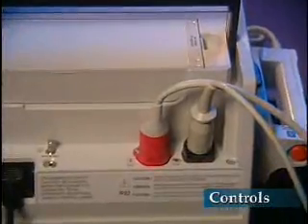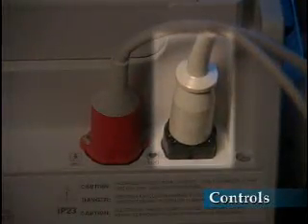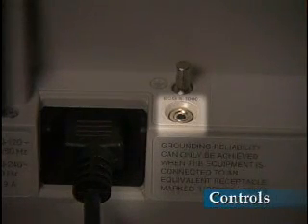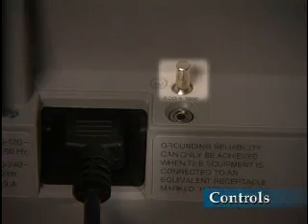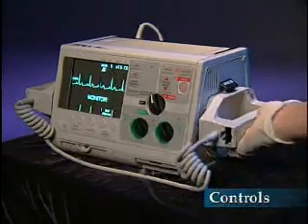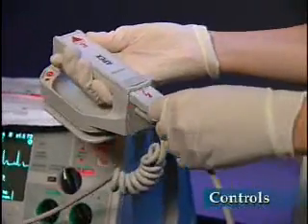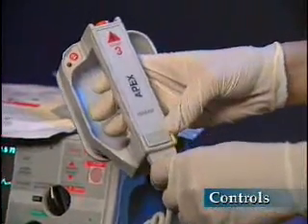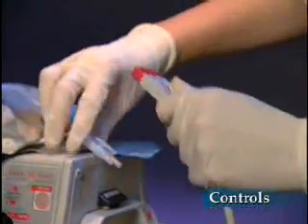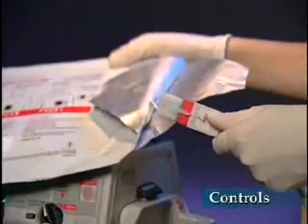On the back of the unit, the ECG input connector for both three and five-lead patient cables is located at the far right. The universal cable is color-coded red and is secured with two screws. A one-volt ECG output is second from the left, and a grounding terminal is located directly behind it. In units equipped with AC mains, the receptacle for the power cable is located at the left. Input for DC-powered units is also located at the left when so configured. The cable end connects directly to all Zoll multifunction electrodes, internal handle assemblies, and the test port.